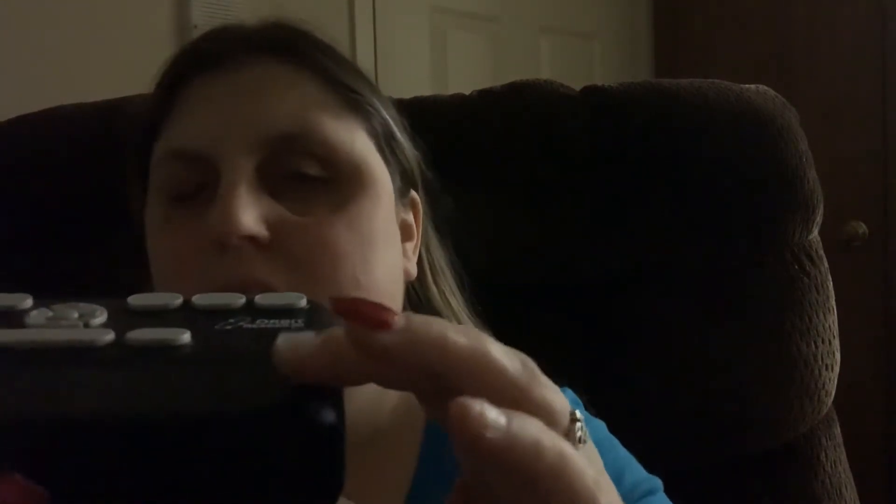People are always like, what does this thing do? Basically, it has pins inside that make combinations of Braille letters, so you can read the Braille instead of listening to the talking. You can read a Braille book or whatever you're going to read. It's not a computer. It's basically just a piece of equipment that makes refreshable Braille — a machine that takes pins and forms them into Braille letters on the bottom. When you move this, it changes.